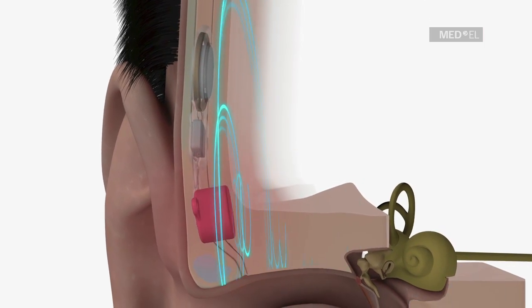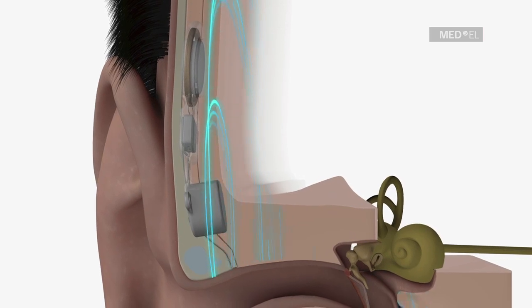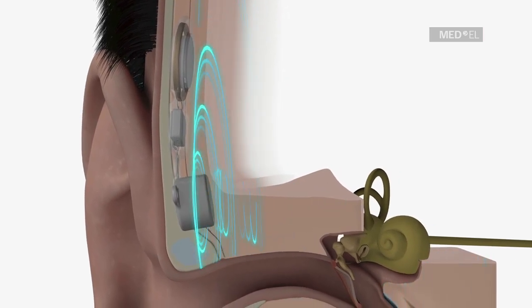The bone conducts the vibrations to the inner ear. These implants are therefore called bone conduction implants.